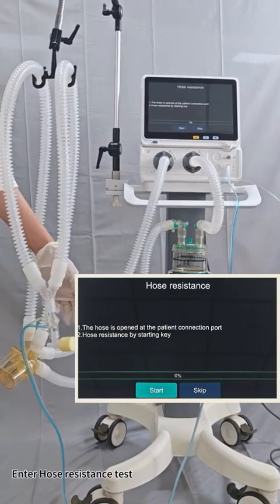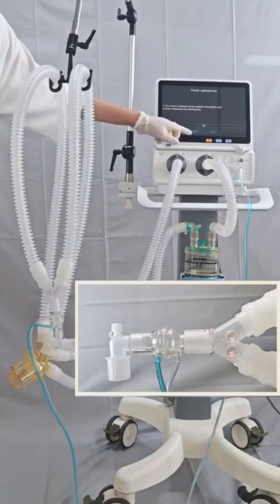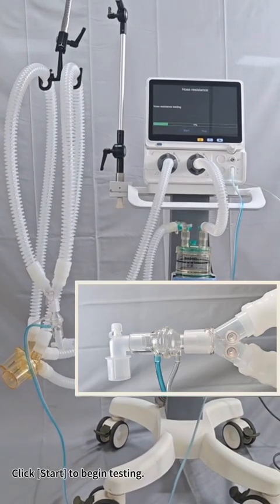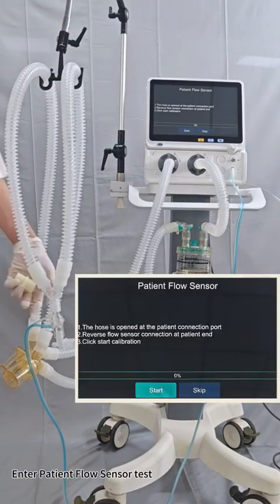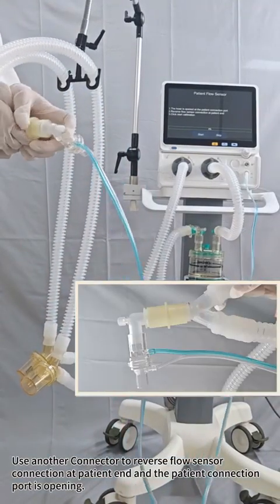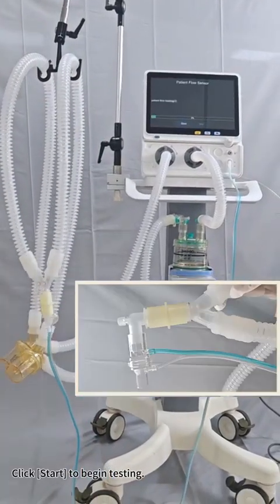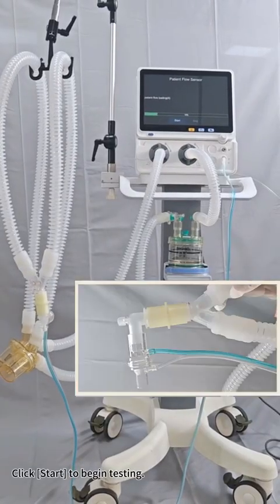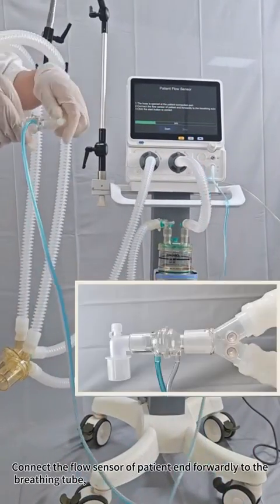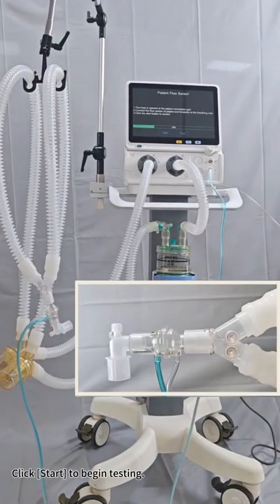Enter hose resistance test. Open the patient connection port. Remove the cap. Click Start to begin testing. Enter patient flow sensor test. Use another connector to reverse the flow sensor connection at the patient end, and the patient connection port is open. Click Start to begin testing. Connect the flow sensor of the patient end forwardly to the breathing tube, remove the connector. Click Start to begin testing.